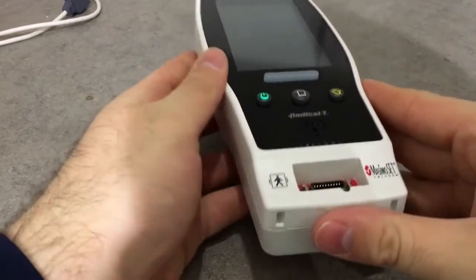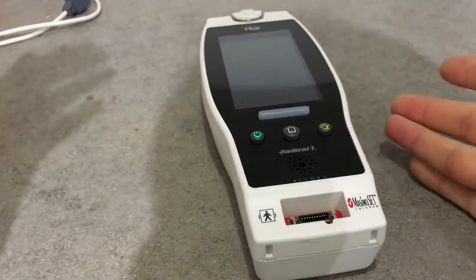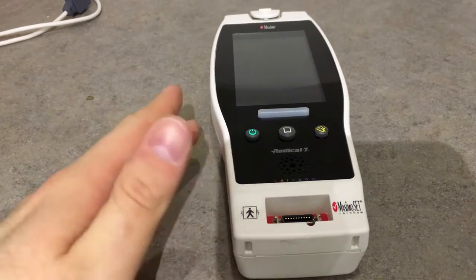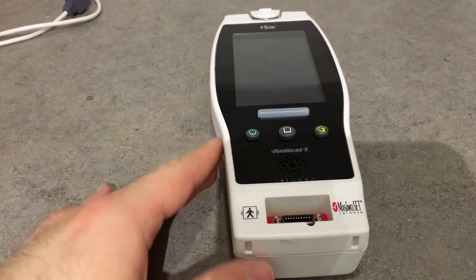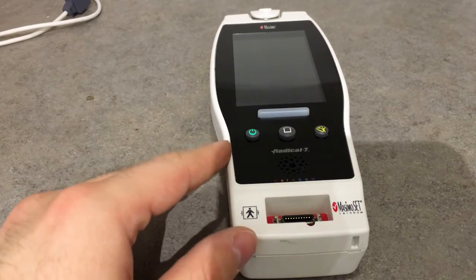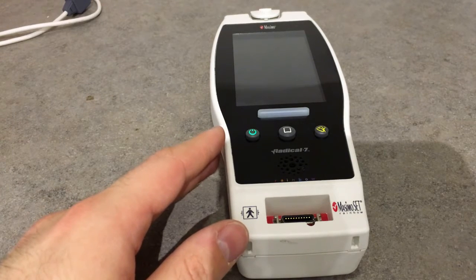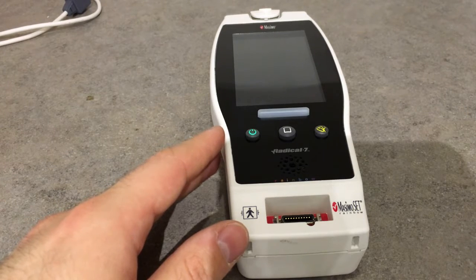What's the difference between this and other pulse oximeters? Most pulse oximeters assume that the arterial blood is the only one that's moving, whereas this pulse oximeter can identify the venous blood signal because it's less saturated, isolate that signal, cancel the noise derived by it, and thus use just the arterial blood signal to give an accurate pulse rate and SpO2.